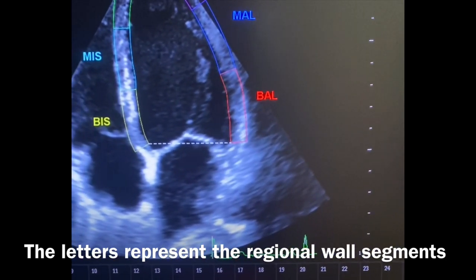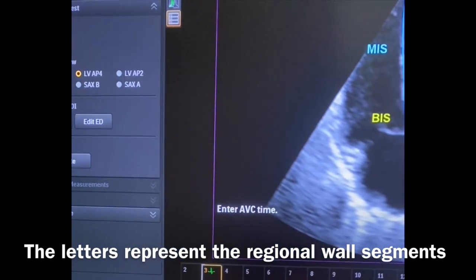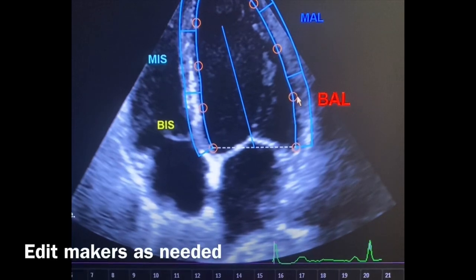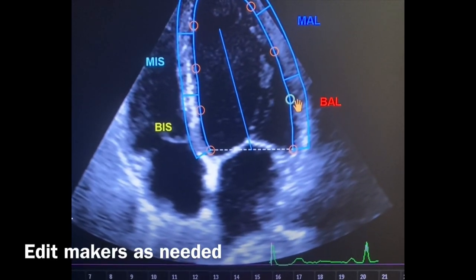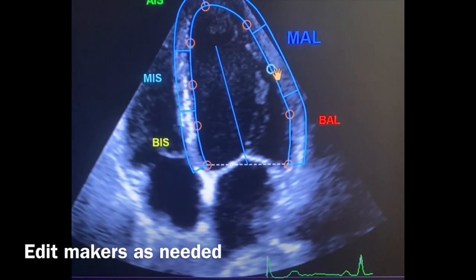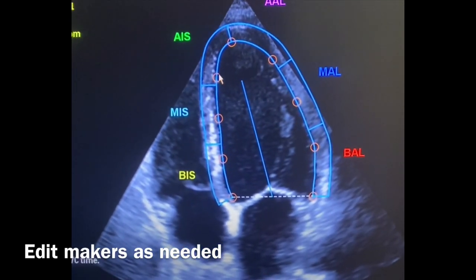Now I'm going to come over here and hit edit, because I want to bring it in a little bit. You got to drag it — you got to press down and hold it — just bringing it a little in closer to the endocardium.